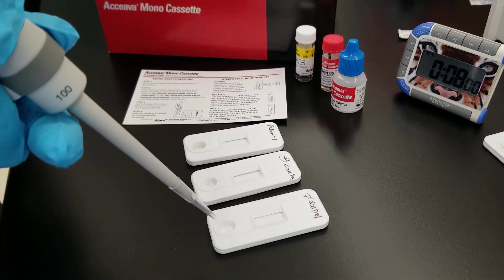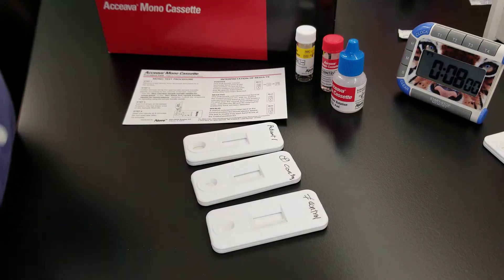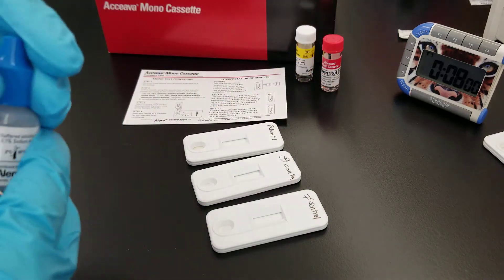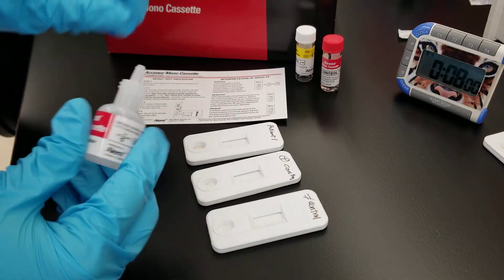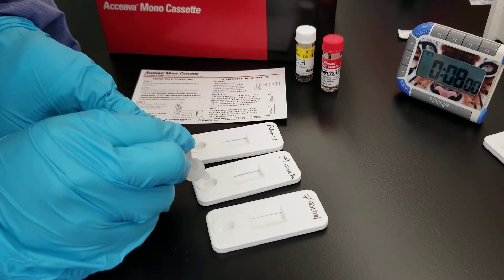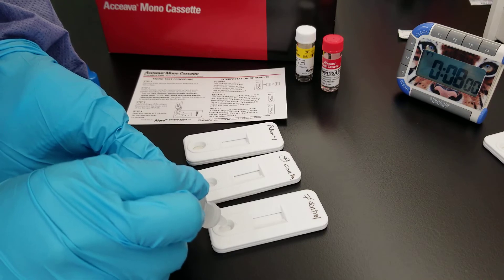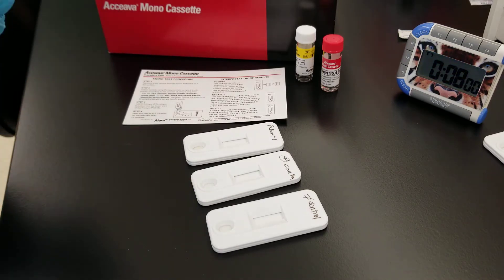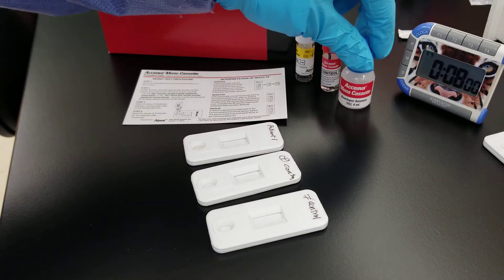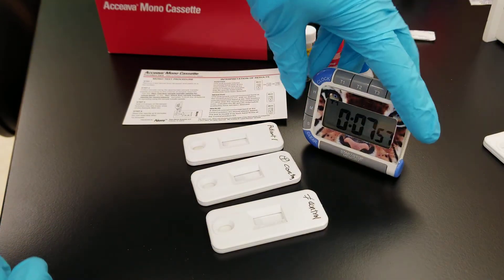Always treat your specimens and controls the same. Now two to three drops of developer — one, two; one, two; one, two.